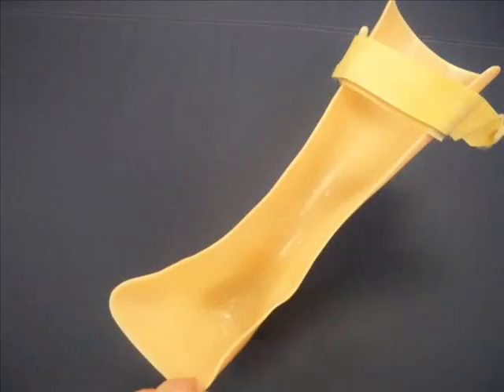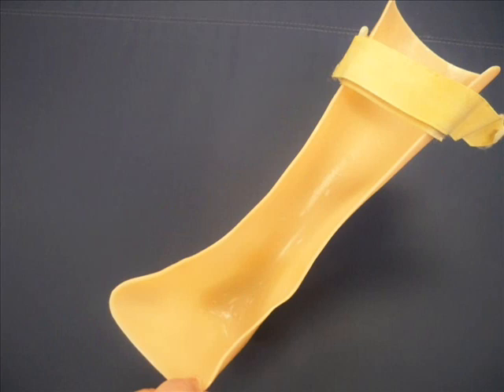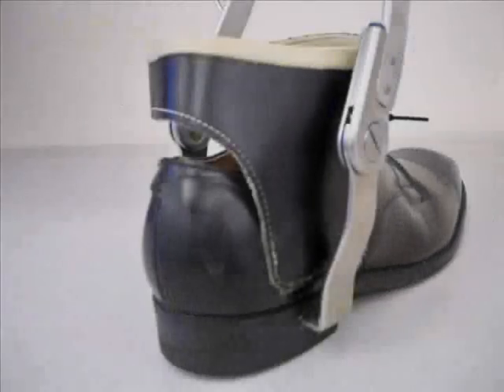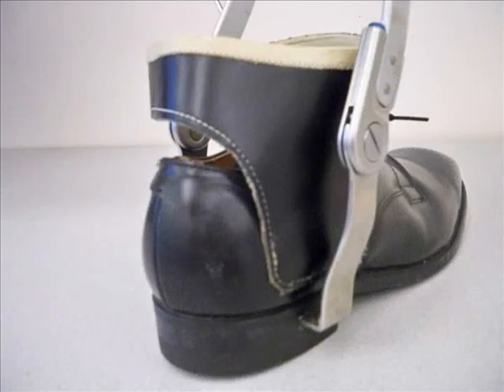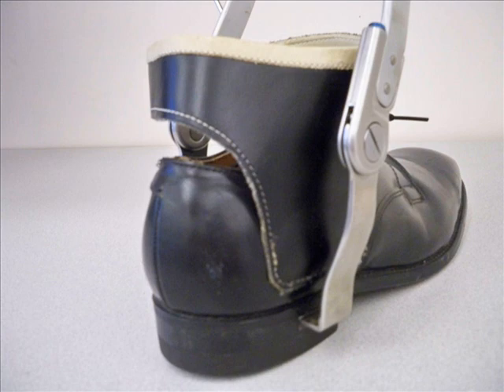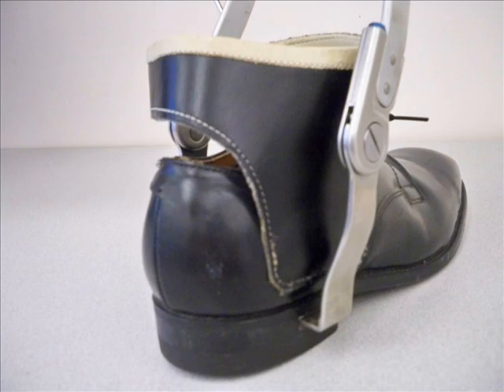A standard plastic AFO can hold a flexible foot in correct anatomical position, but it isn't adjusted to fit fixed deformities. The varus or supination-correcting leather flap and strap is an example of an orthotic component that would hold a flexible ankle in position — when the person weight bears and the ankle would roll out, the leather pad keeps that from happening.